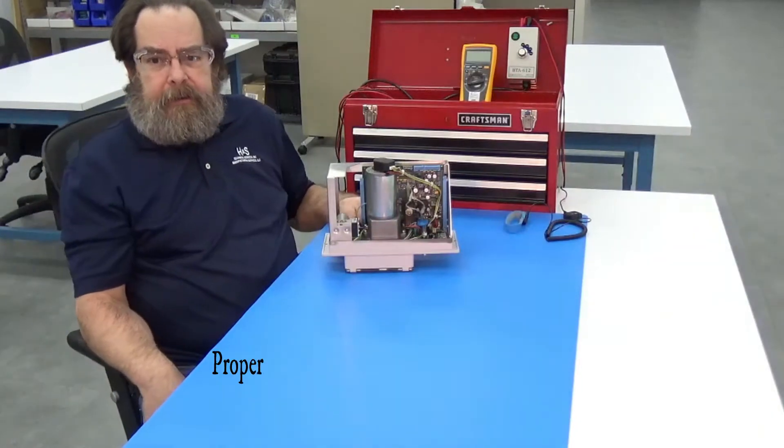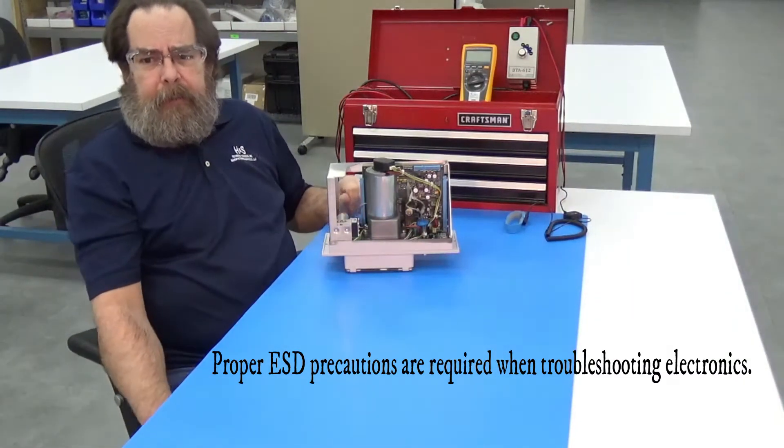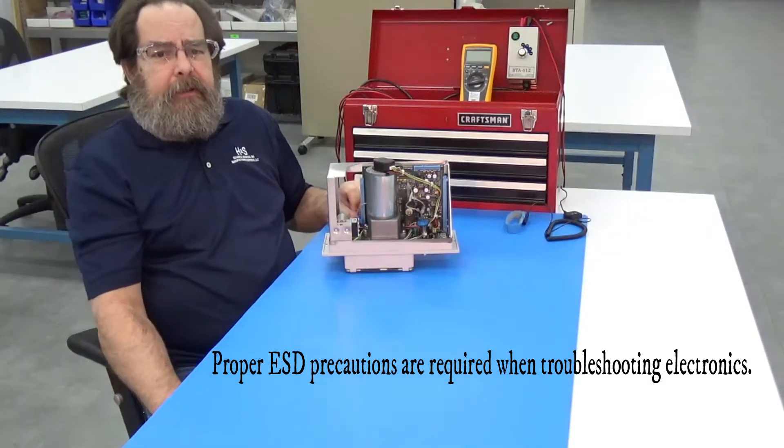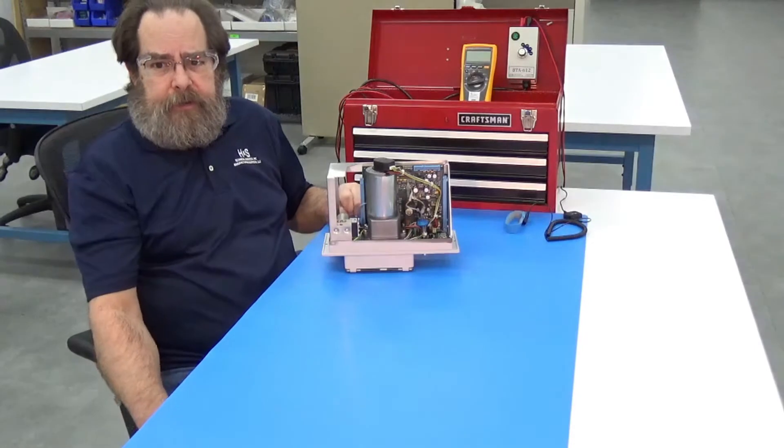Hello, my name is Dale. Today H&S will be showing Biomeds a way to check their blood pump motors for external shorts.